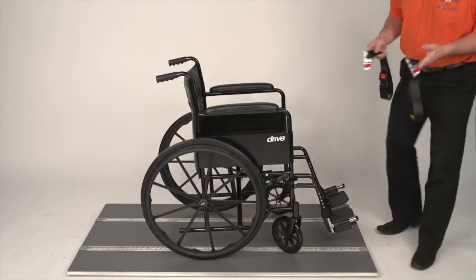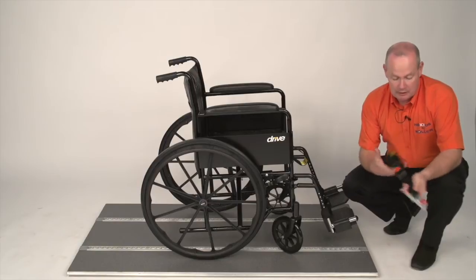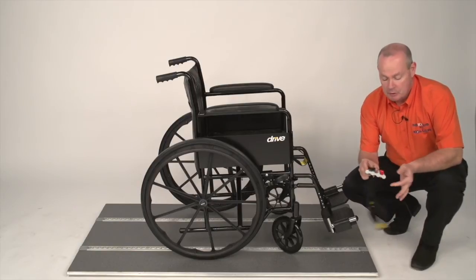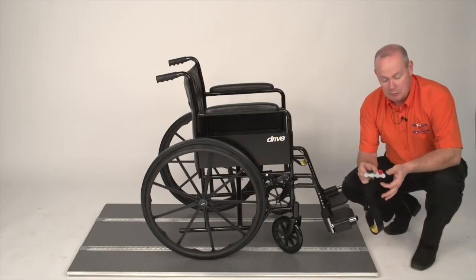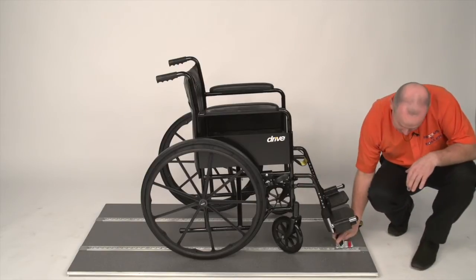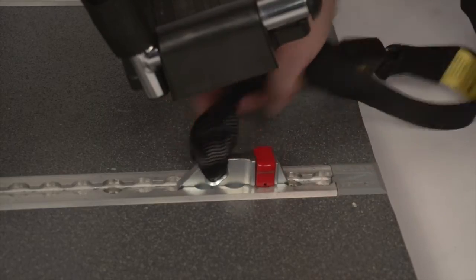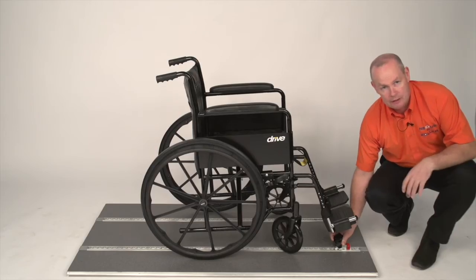We're going to start off by securing the wheelchair using the front straps. The front straps are webbing with a buckle and tongue and a clip on the bottom. When you put the clip into the track, the most important thing is you don't touch the red plunger. You put the clip into the track by tipping it slightly forward, pushing down — the plunger will lift up. Go forward, you'll hear it click, and you know it's located.